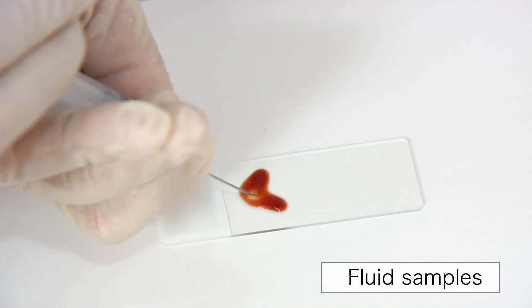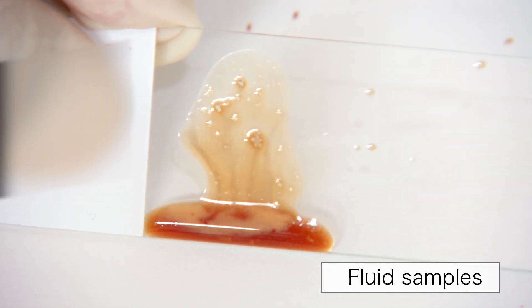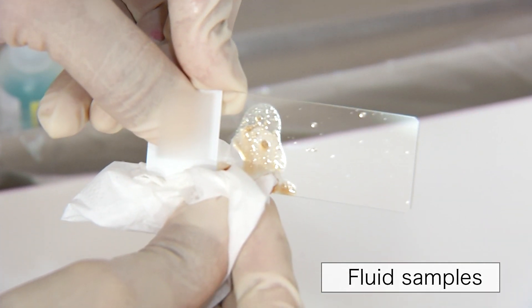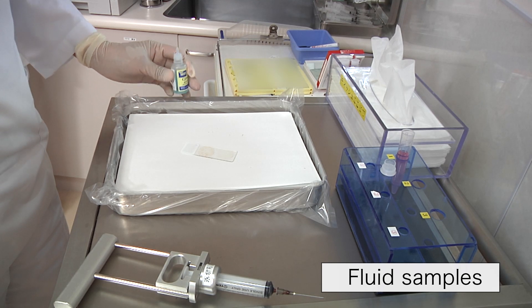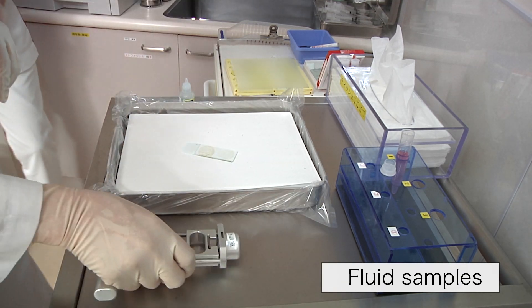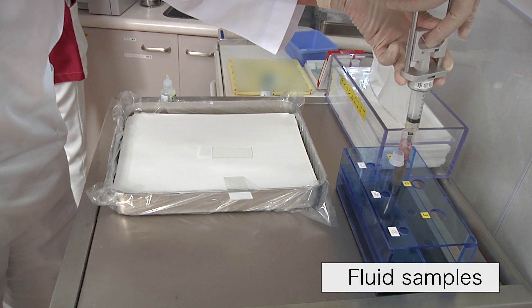When we aspirate fluid samples, we slowly tilt the glass slide and remove the excess material. Then, we wipe up the fluid flowing from the glass slide and perform the press and release method. On fixation, we wait for some seconds until the cellular components adhere to the glass slide. For fluid materials, liquid-based cytology is also recommended instead of conventional preparations.